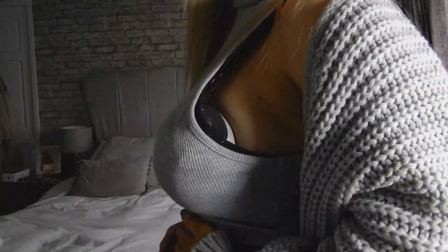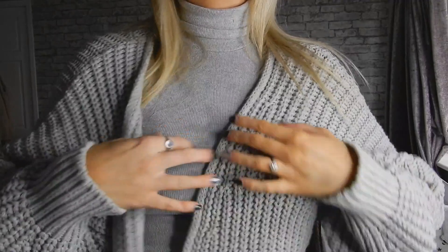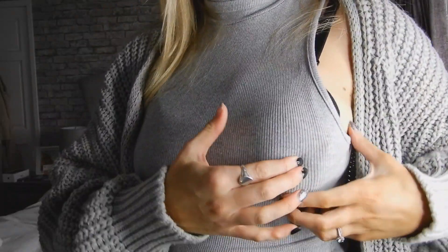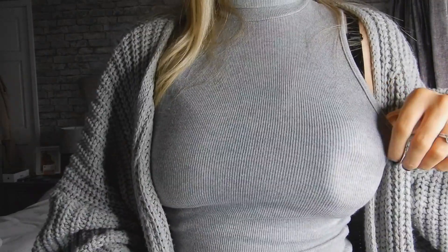So that is it in — can't tell too much, you can definitely cover it up with a cardigan, can't tell at all. And then all we have to do is press it in for the suction and it will sit and suck.